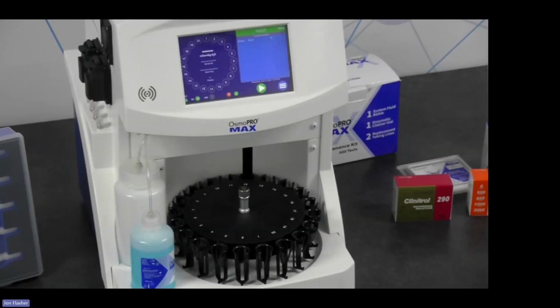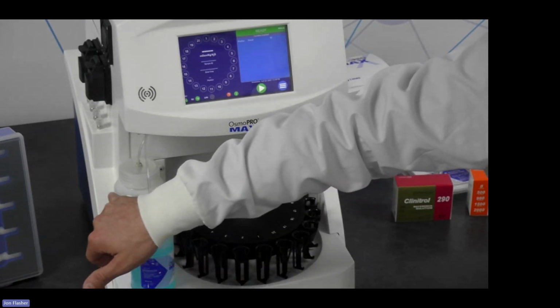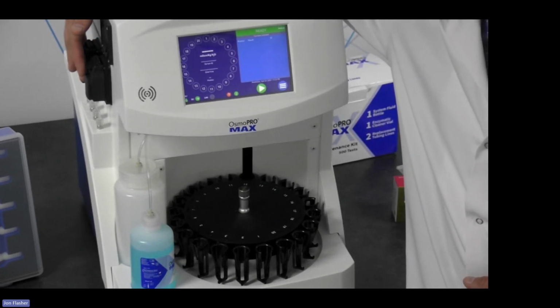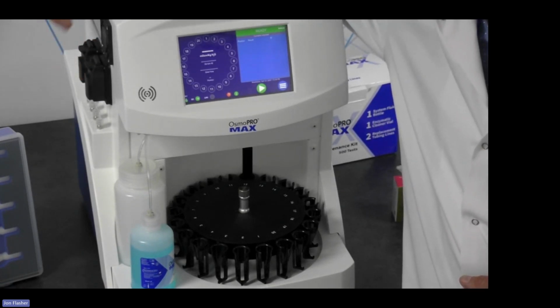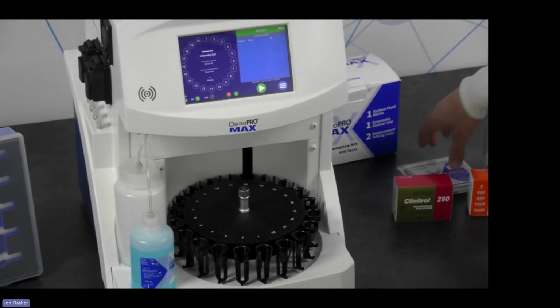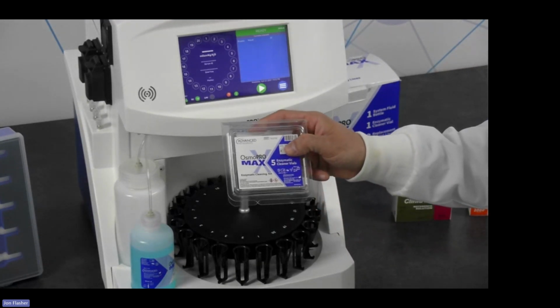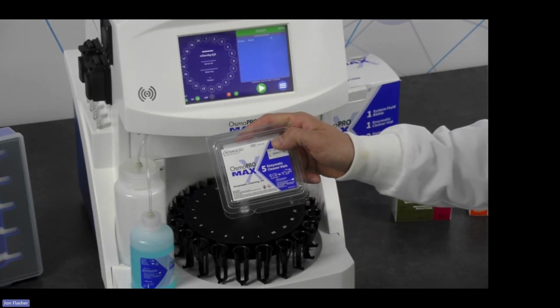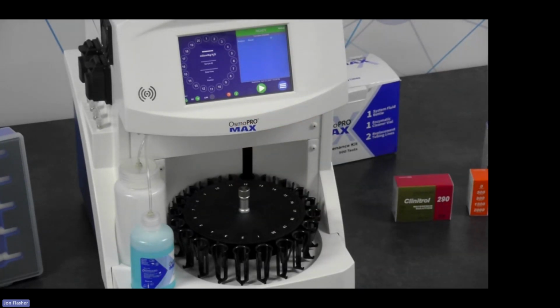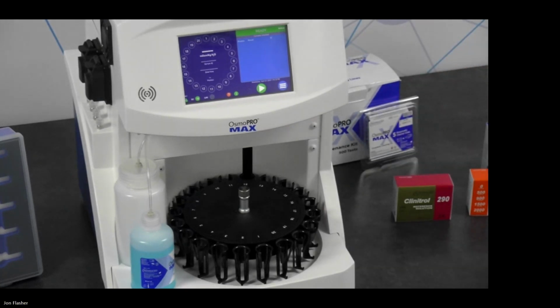And when you do that, you'll simply be changing out the system fluid, dumping out anything that you have in the waste container, and then replacing 2 little tubes that clip right into these little peristaltic pump housings on the side of the instrument, as well as running a small vial of enzymatic cleaner. The enzymatic cleaner can also be found in a 5-pack as well as a 30-pack for a recommended daily cleaning at the end of each shift as well.